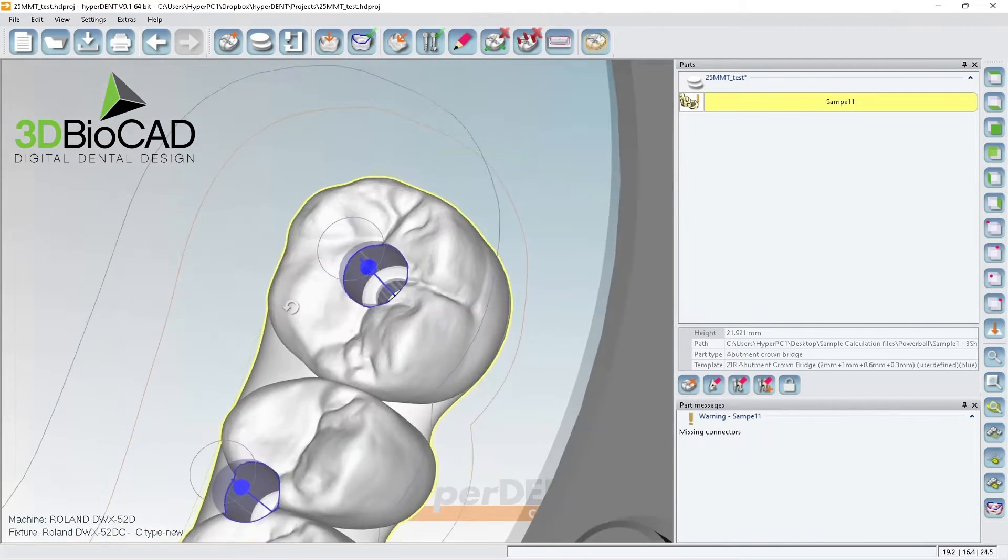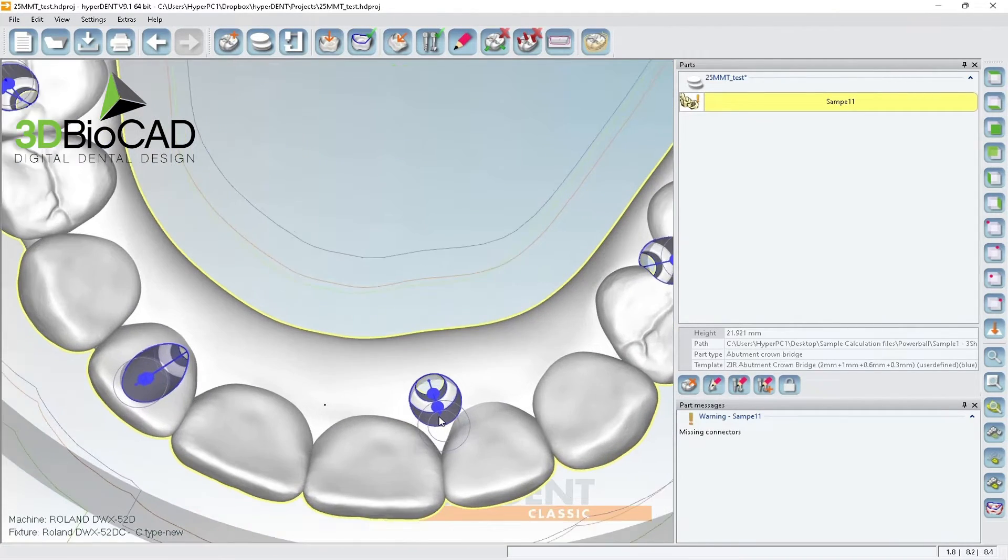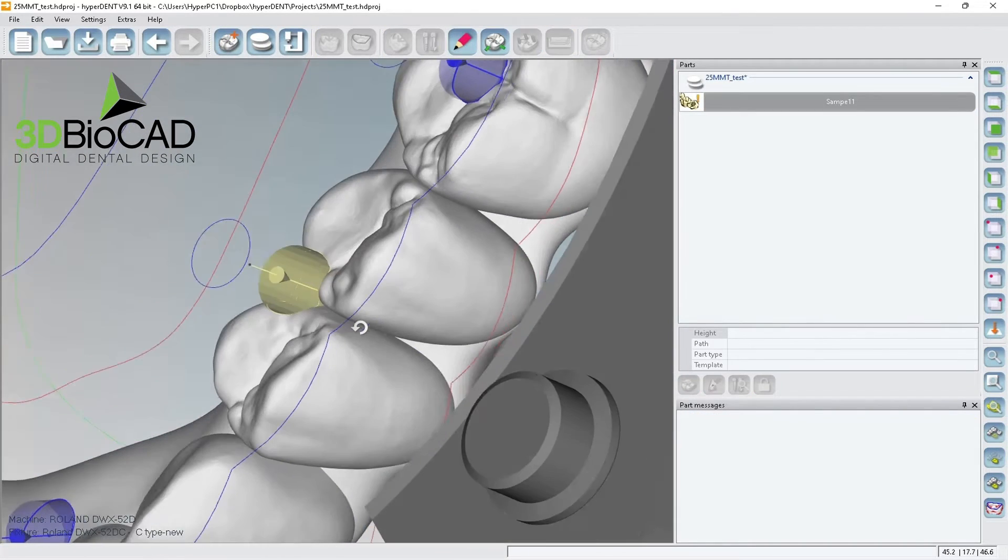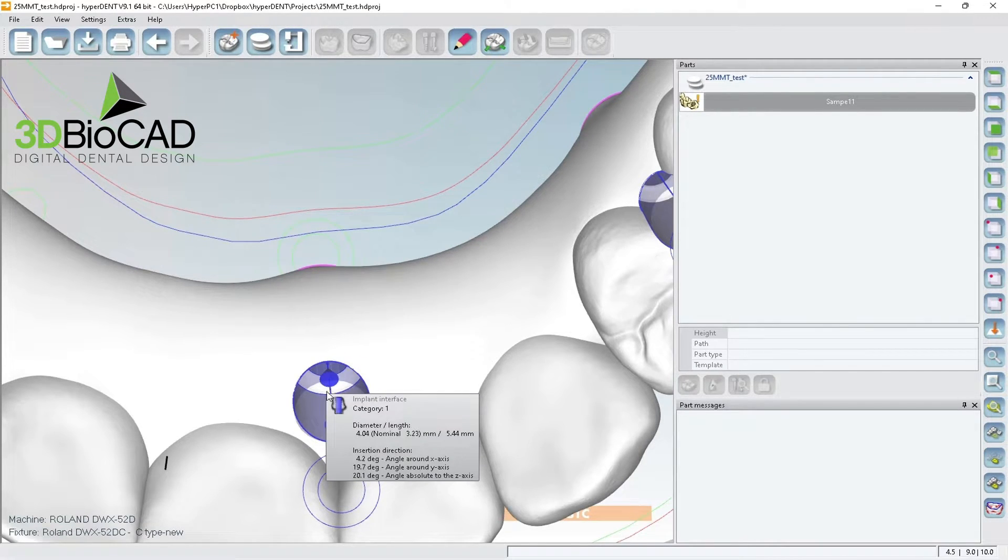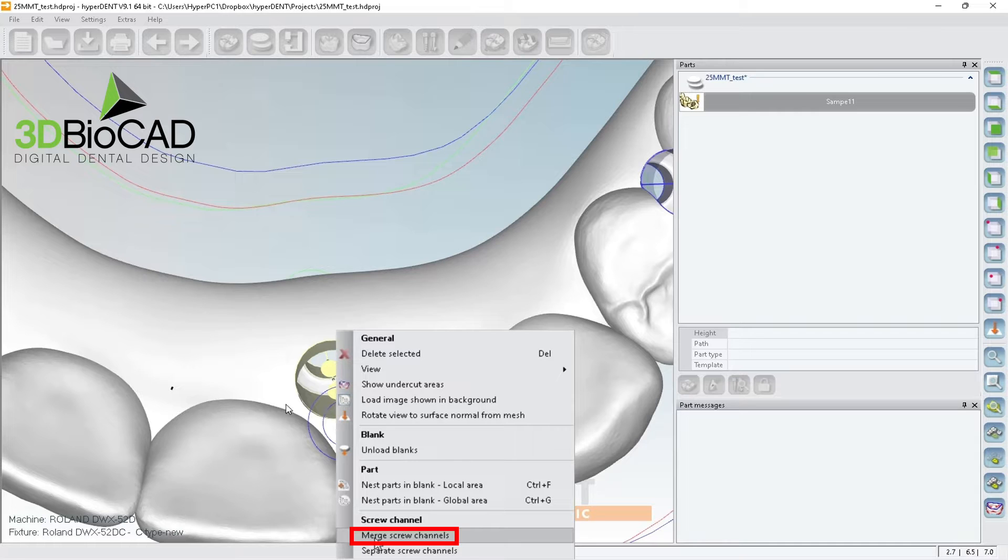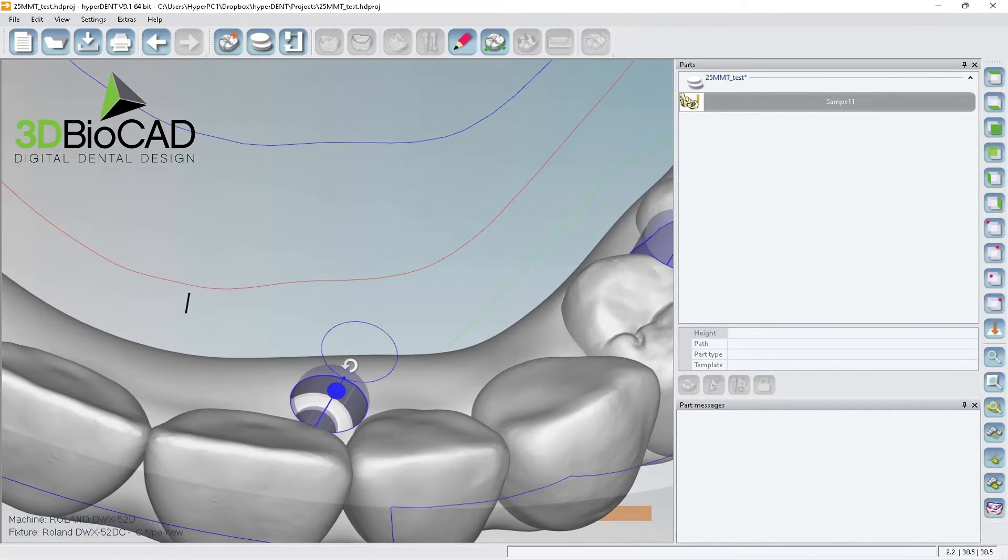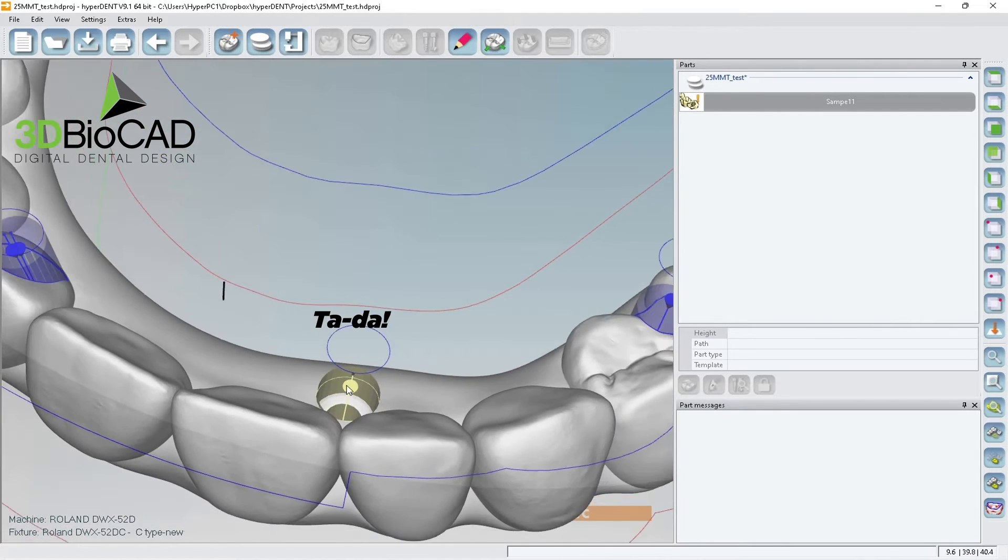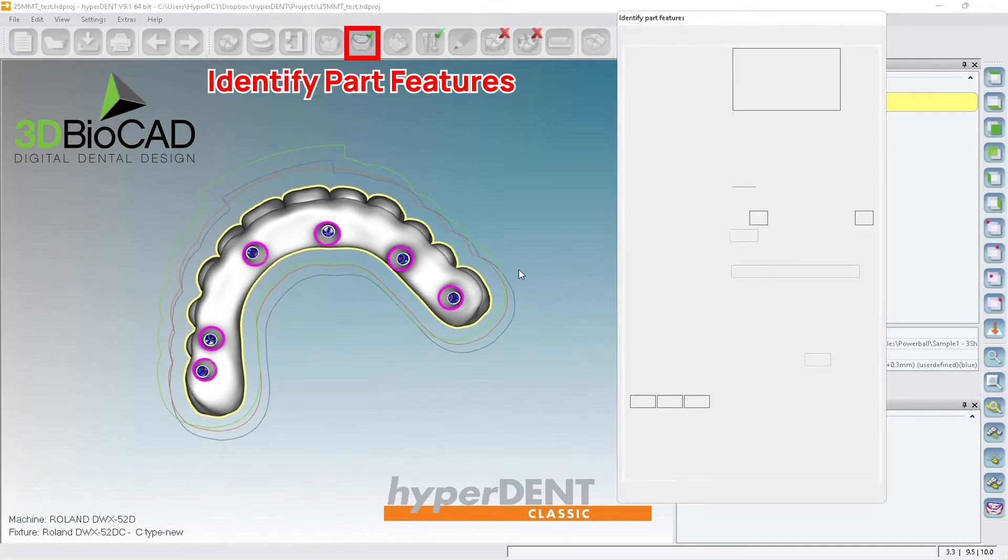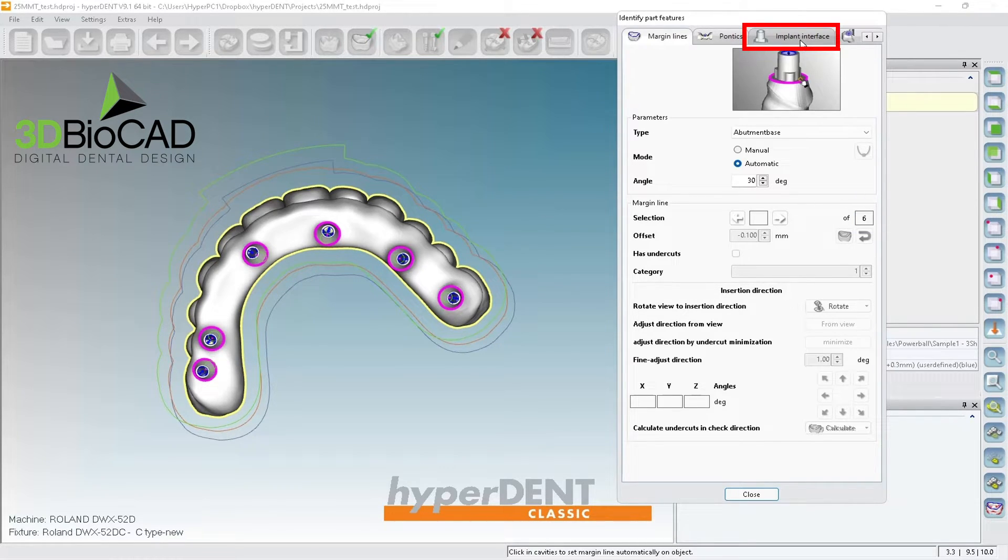So let's check. I know exactly which one. It was this one. See, like this one, I only have one arrow. Like it's kind of looking like that. But then this one, I have one here, I want there. So you have to highlight both of them. Right click, merge. So you have one screw channel. So that's perfect. So if we go back, now everything is perfect because we have six pink lines. One, two, three, four, five, six.